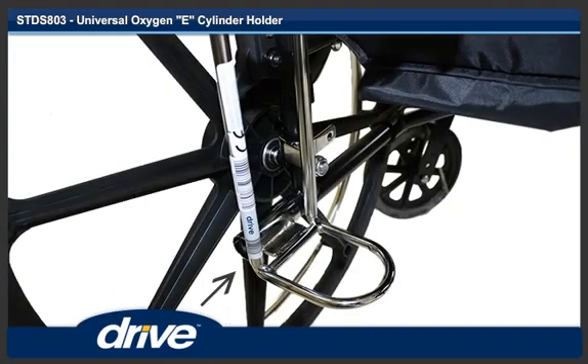Step 3. Remove the cap screw from the U-bracket and slide the unit onto the left side frame. If the unit will not slide onto the left side frame, remove the spacing sleeve. Continue sliding the unit onto the left side frame until the U-bracket wraps around the rear upright of the left side frame.